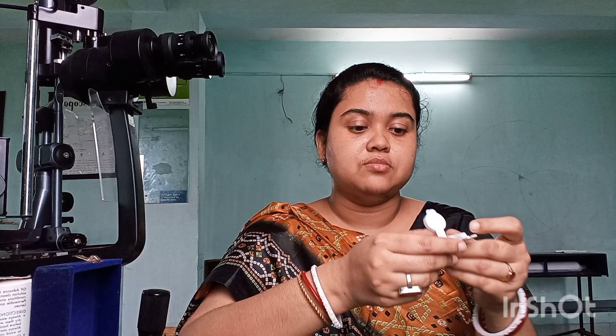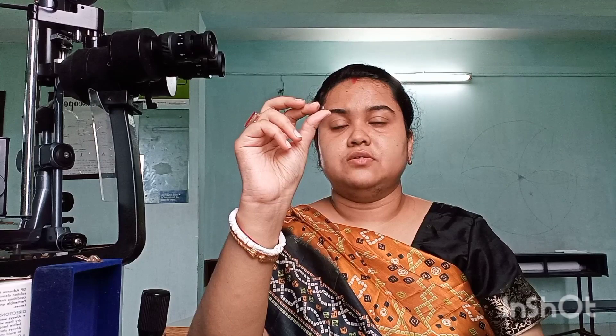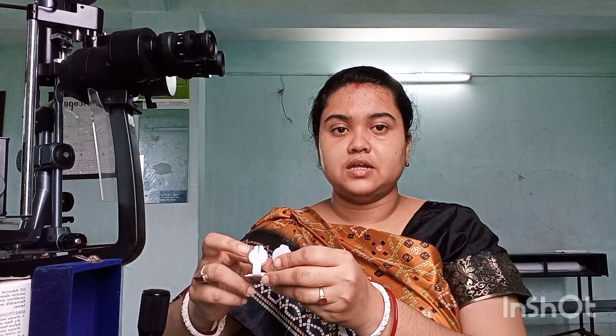An RGP lens trial box contains three parameters: base curve, power, and diameter. You can see these written on the trial lens. The lenses are very small in size and comparatively harder. You can also find the base curve written as a watermark on the lens itself.